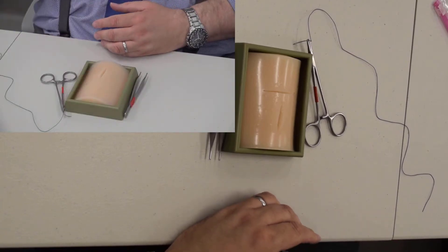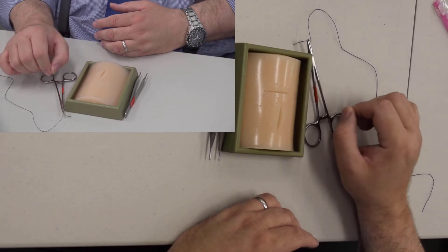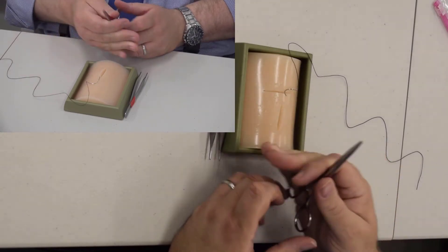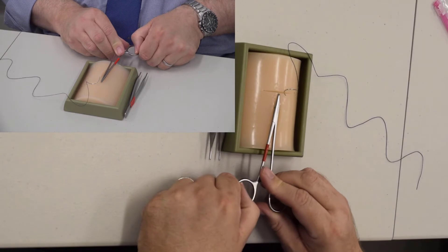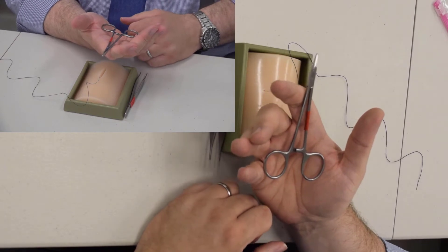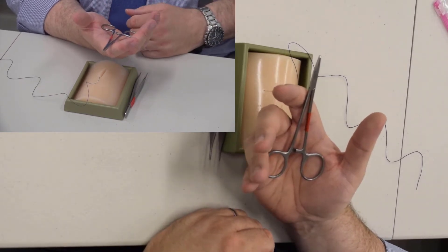What I'd like to teach you now is the instruments that you're going to use and how you're going to use them. This is a needle driver. It's straight — not curved on any of its surfaces. You should learn to use a needle driver without putting your fingers into the holes that are here in the needle driver.